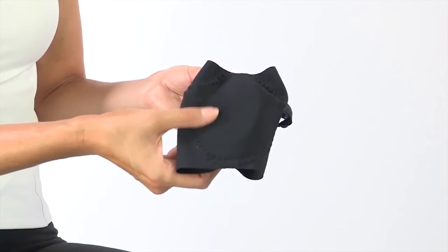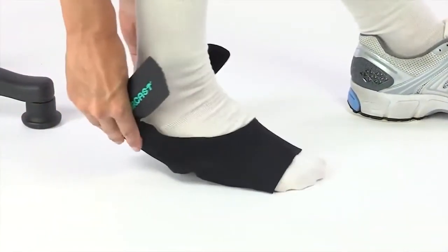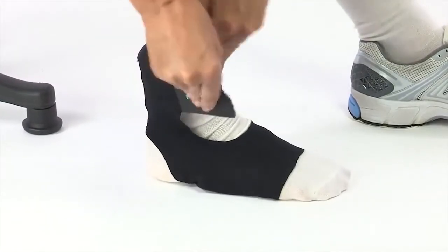The Air Heel is made of breathable lightweight fabric and is simple to apply. It slips on just like a sock and easily adjusts with one strap.